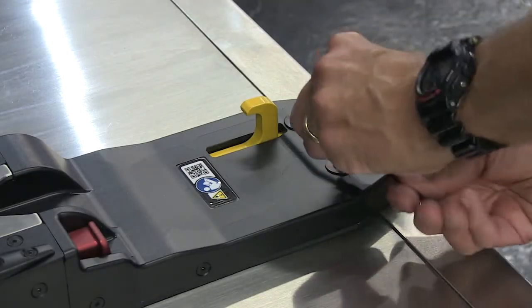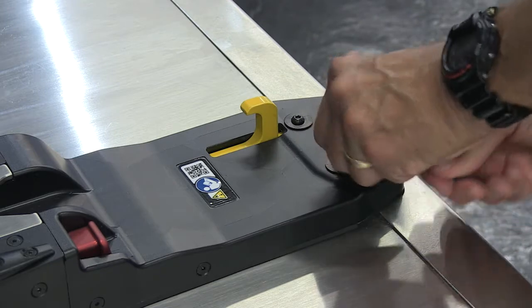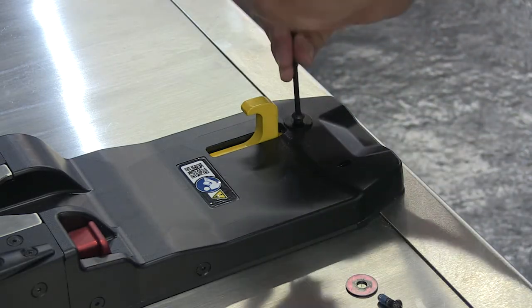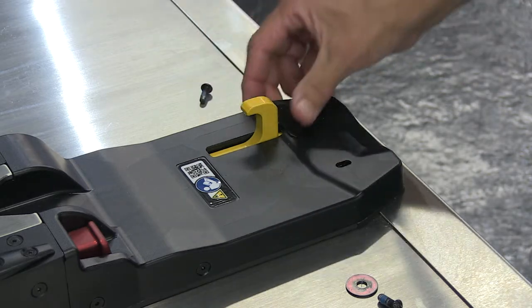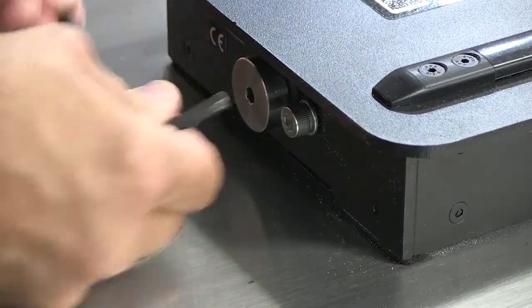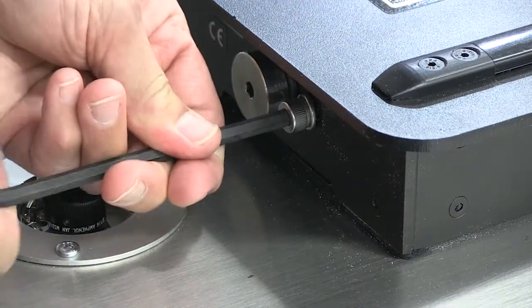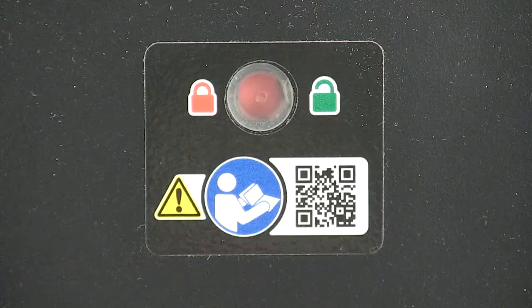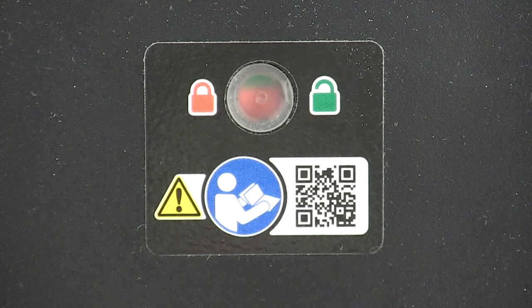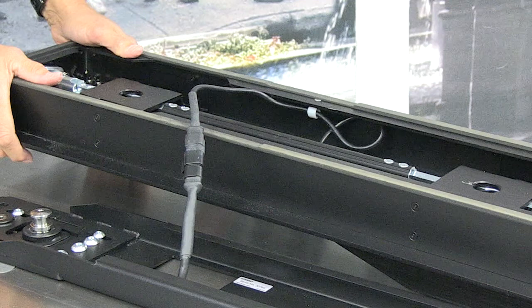The upper fastening system is designed to be removable for cleaning. To remove it, use a 4mm Allen wrench to remove the two screws and washers from the nose. Do not discard the screws or washers. Use a 6mm Allen wrench to loosen the set screw at the end of the fastening system near the floor lock window. Use that same wrench to loosen the fastening bolt until the floor lock window changes from red, which means locked, to fully green, which means unlocked. Be aware that the ICS cable is connected to the floor outlet under the fastening system.